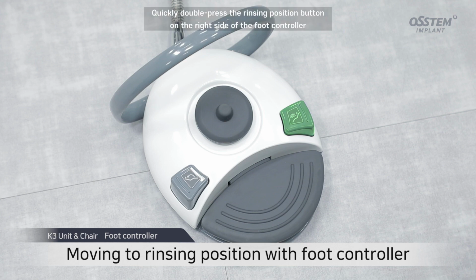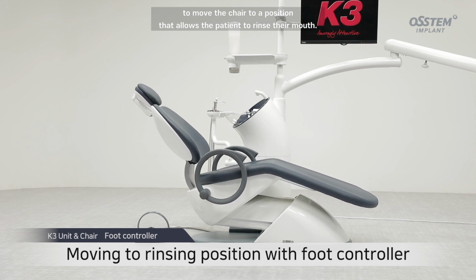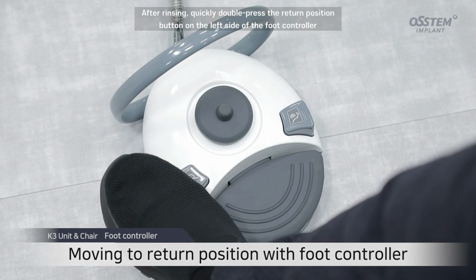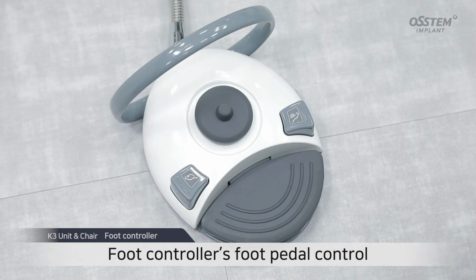Quickly double press the rinsing position button on the right side of the foot controller to move the chair to a position that allows the patient to rinse their mouth. Once pressed, the chair will not function. After rinsing, quickly double press the return position button on the left side of the foot controller to move the chair back to the return position.